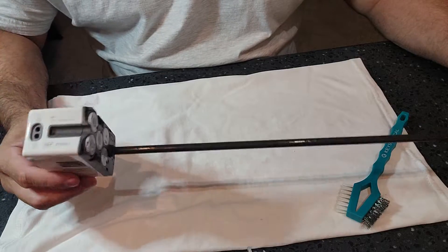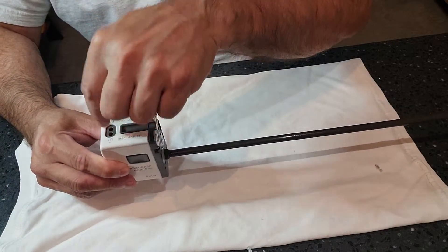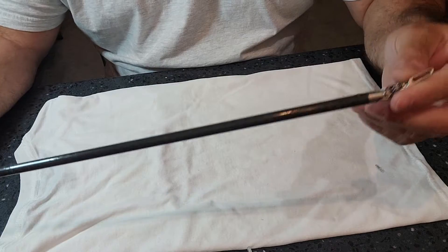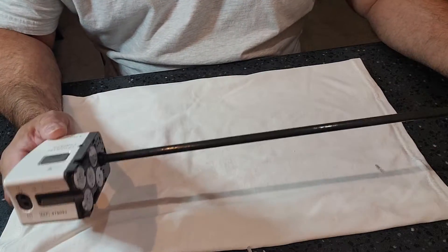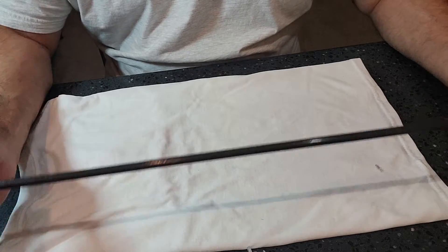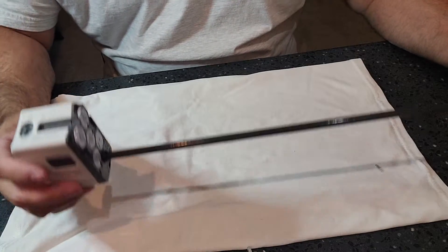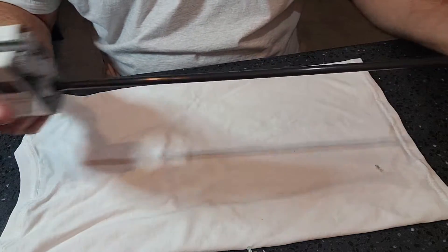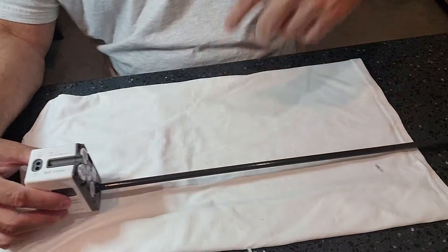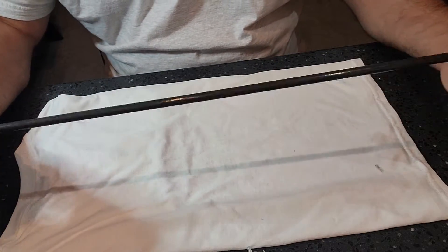What kind of ultrasonic are you putting this in? If you put this in a regular ultrasonic, it's going to do nothing. The ultrasonic has to be an irrigating ultrasonic because you need to prime the port, attach it, and allow cavitation. This is plastic — even though it has some metal components, a regular ultrasonic won't work. The IFUs of most ultrasonics state that plastic and rubber cannot go in. You need a special irrigating ultrasonic, especially given the length — it won't even fit in a standard one. Connect the port, let it flush the ports, and allow cavitation bubbles to reach the metal ends.